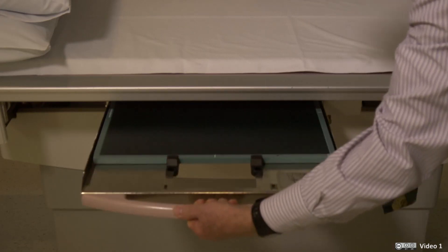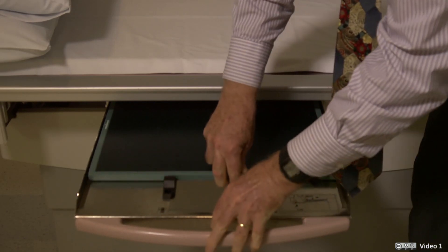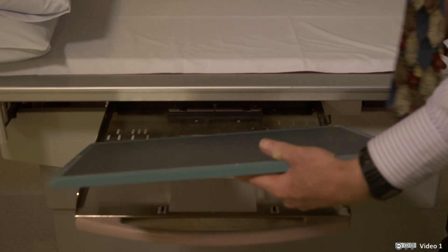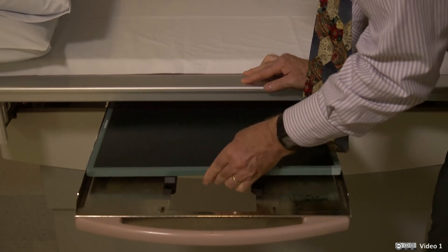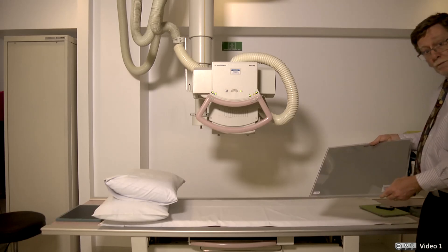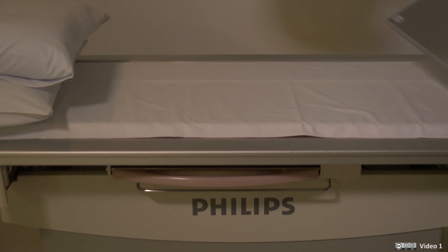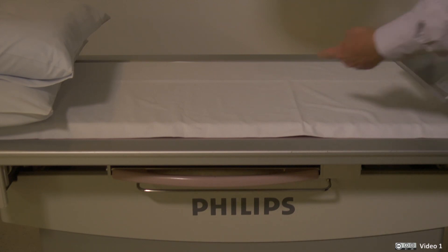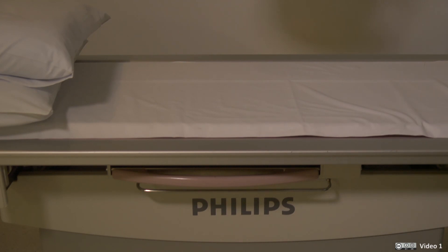Under the bed is the detector system. This can be either photographic film or a digital detector, as is used in this particular system. The bed also contains the bucky grid. A grid is used to reduce scatter x-rays, and it needs to be moving slightly backwards and forwards during the x-ray exposure — otherwise there will be lines from the grid on the image.